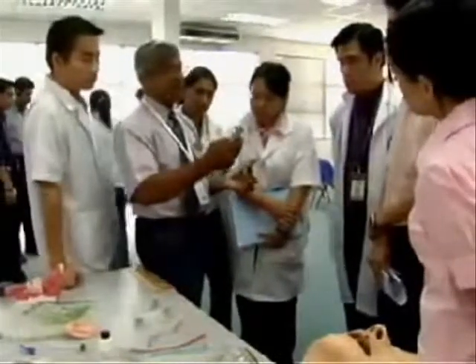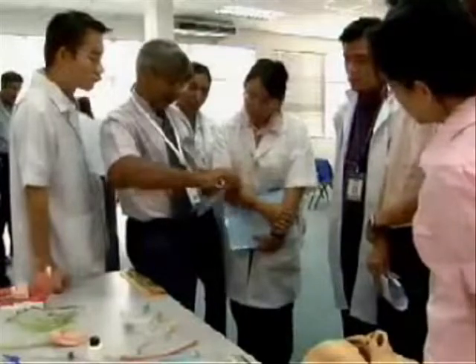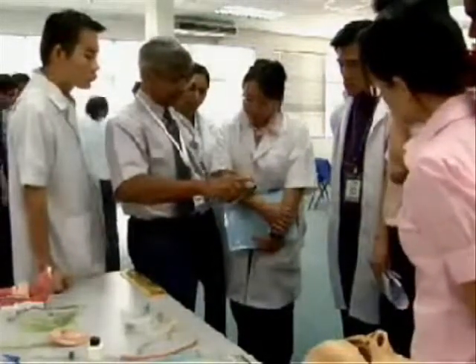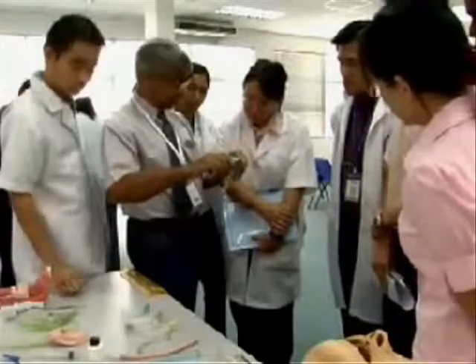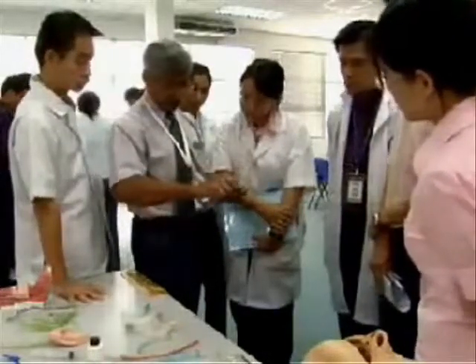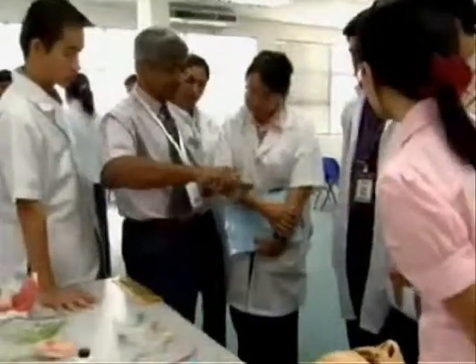This is the handle, there is the blade. Sometimes you will get a straight blade, sometimes like this, but it is a standard blade. When you press like this, the connection is complete.